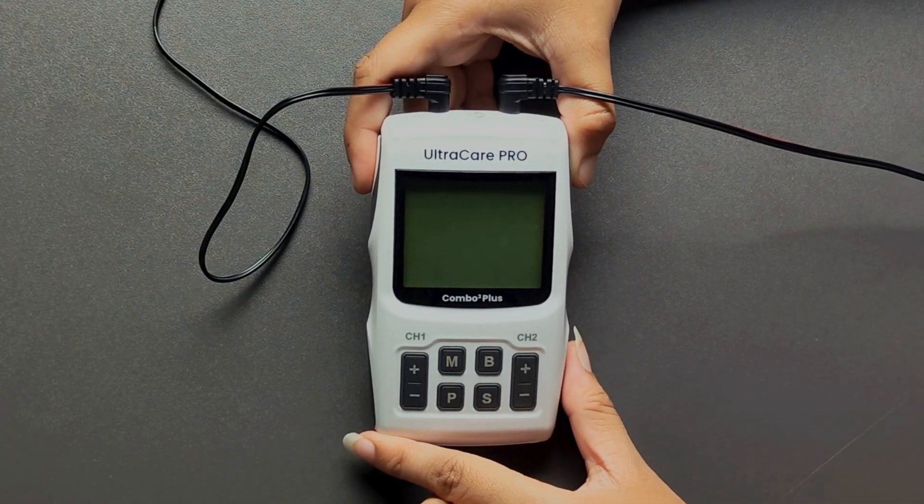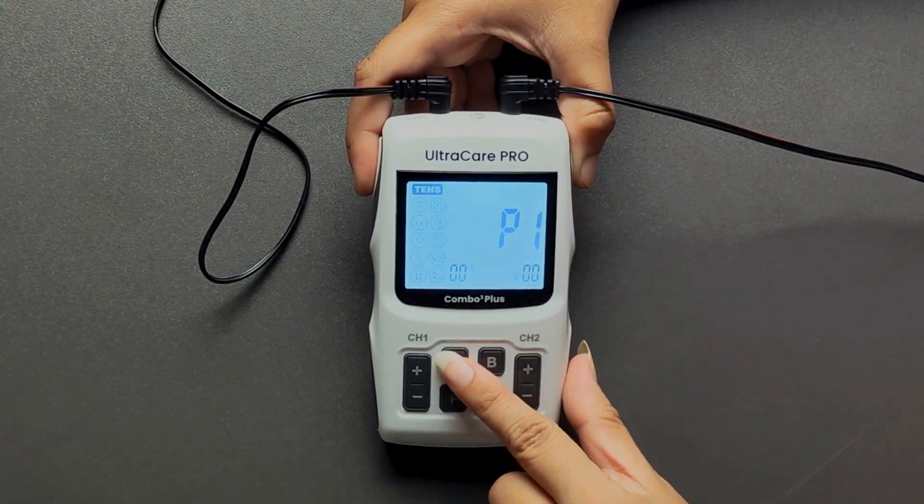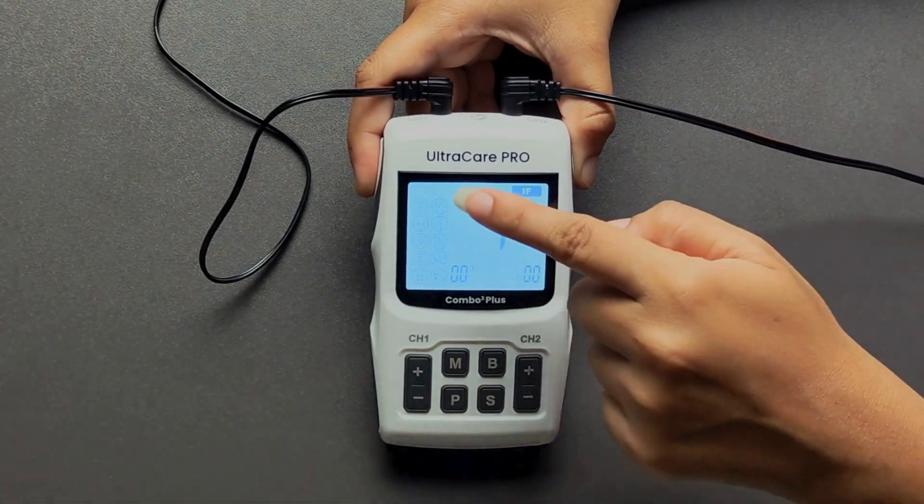Long press the power button to turn on the device. Next, press M button to select your treatment mode from IFT, TENS, EMS, and Russian current therapy.